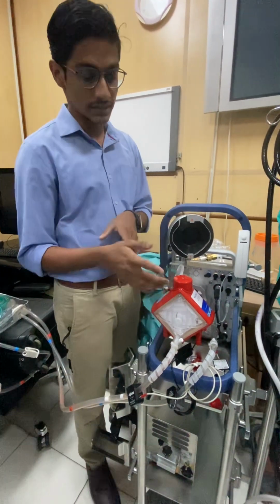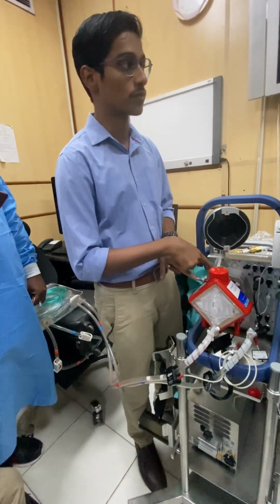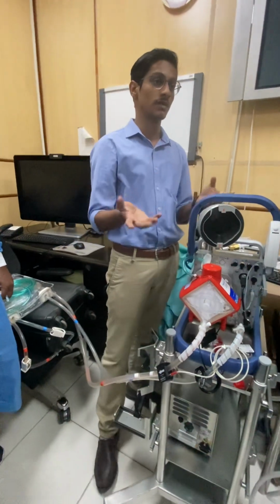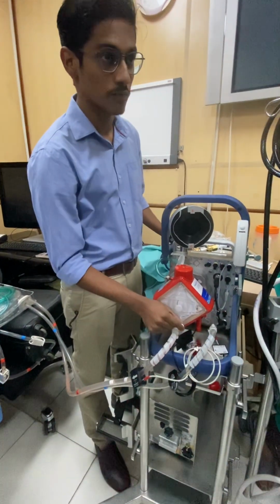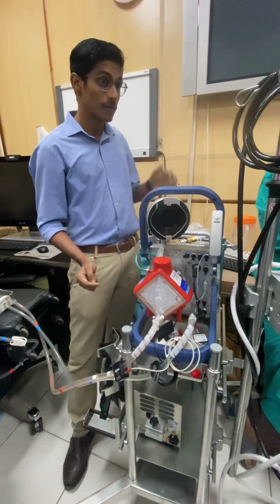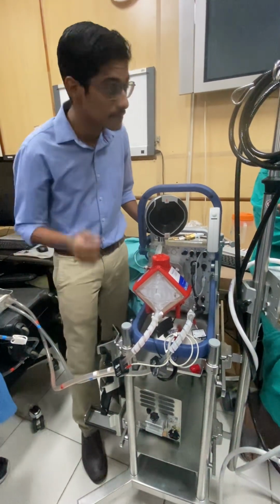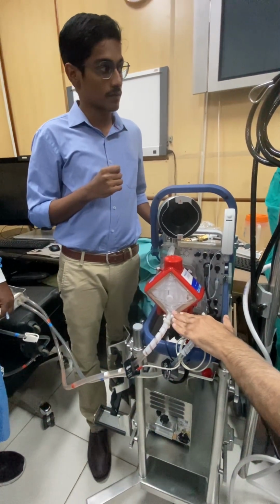But it is important. In such a situation, you can always connect a pressure monitoring line into these ports, pre and post ports, and you connect it into the external monitor and get pressures. ये कनेक्टर उसके हैं. हाँ, these are ports for that. So air should come from here. If pressure line is connected to this, यहाँ से प्रेशर करेंगे तो प्रेशर सामने आ जाएगा.